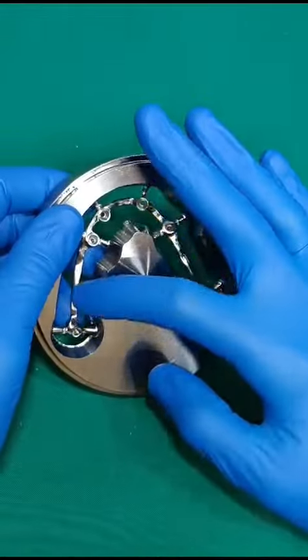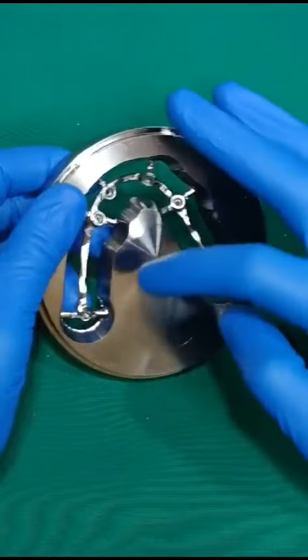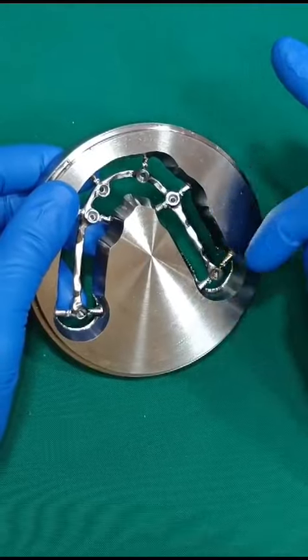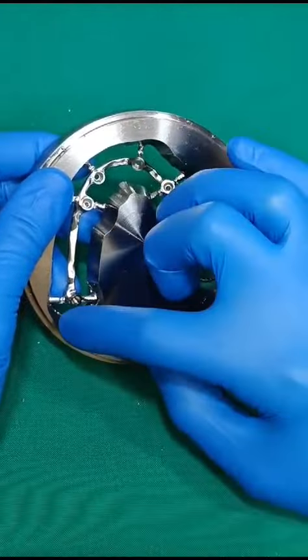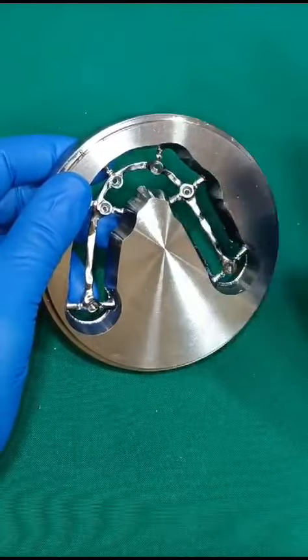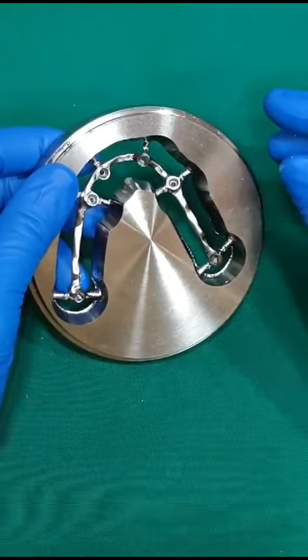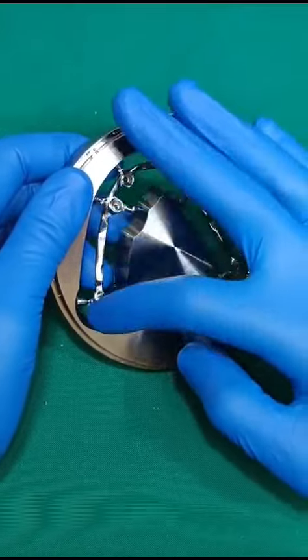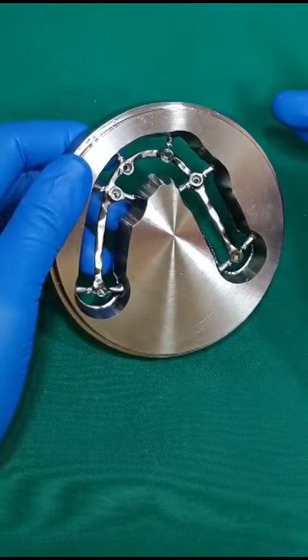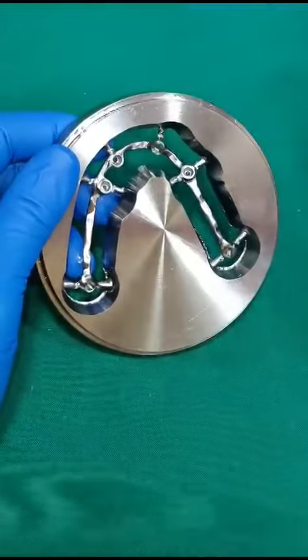If we go for a cement-retained process with a single-piece implant — for example, a hybrid bridge or metal acrylic bridge — removing it may create a lot of disturbance and vibration. That is one problem. And if you go for welding, doing welding over this kind of long inter-implant distance will result in a lot of flexibility in the welding wire, leading to failures.